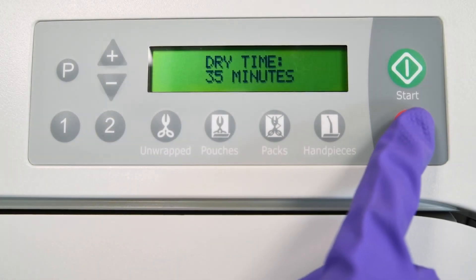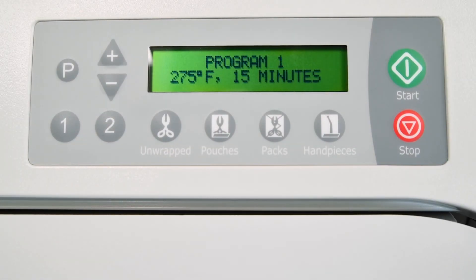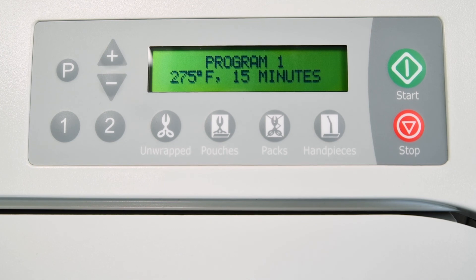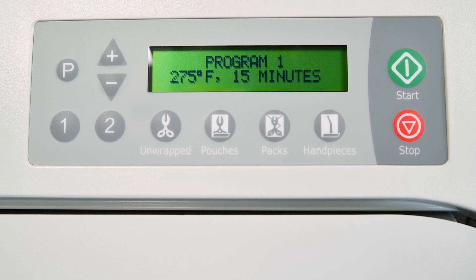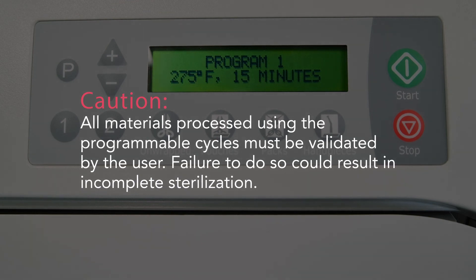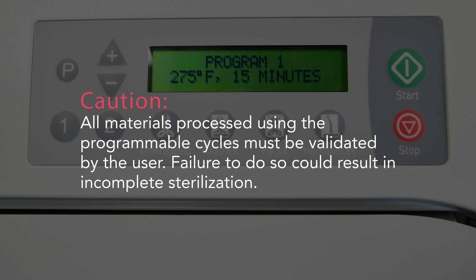Or press stop to abort changes and revert to the original settings. If the settings are saved, the display will show the new cycle parameters. The programmed settings are retained even if the power is interrupted or if the unit is unplugged. All materials processed using the programmable cycles must be validated by the user. Failure to do so could result in incomplete sterilization.